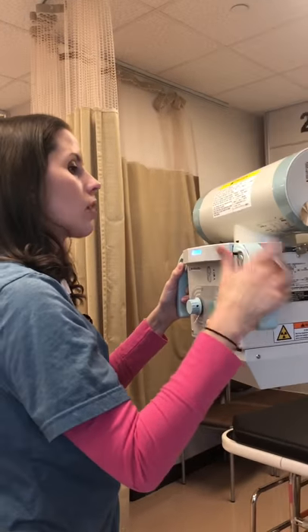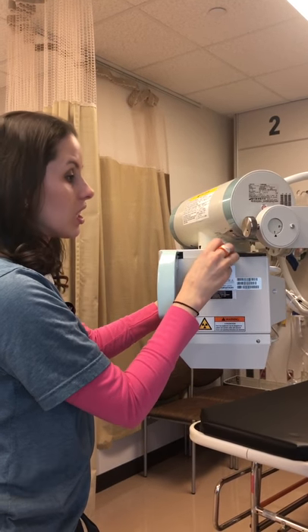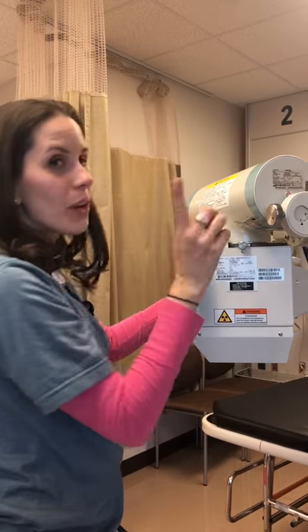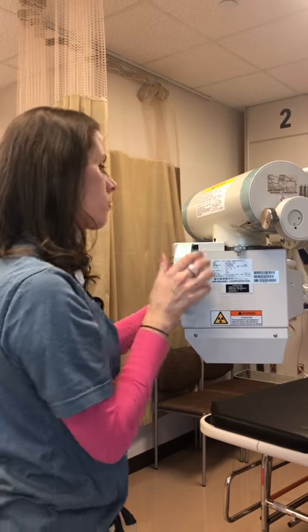If it's not staying in the position you want, tightening those screws will firm it up. Just be cautious — this can easily fall out if it's really loose, so be careful. If you see this on the floor, remember that's where it goes. It's very important because your tube will just fall and you won't be able to take your X-rays effectively.